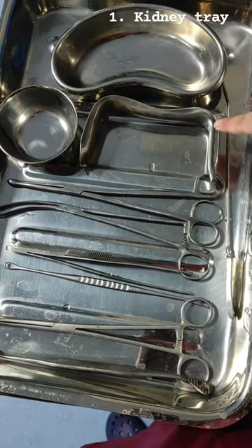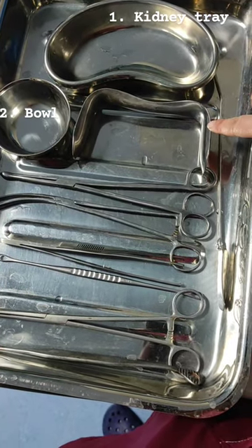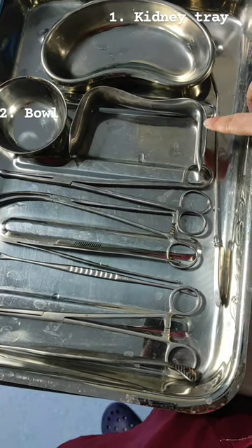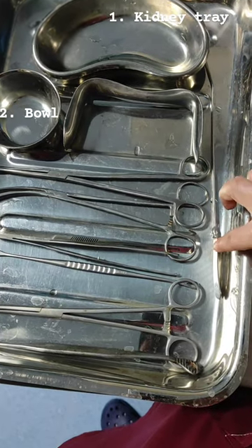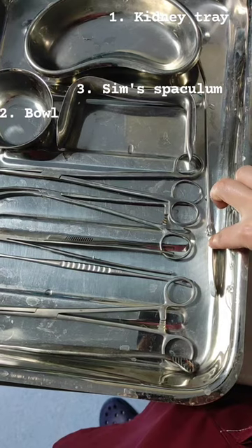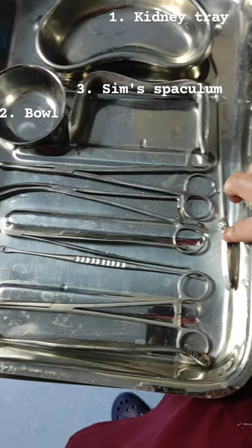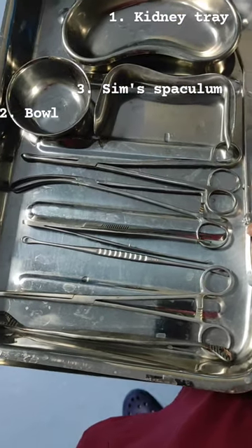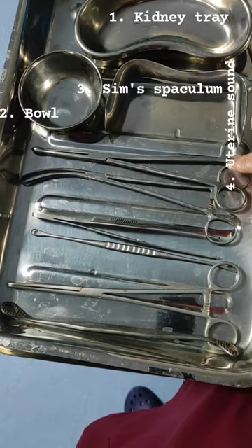The second article is a bowl, used to keep gauze pieces and betadine. Next is the Sims speculum, also called the double-bladed Sims speculum, used for visualization of the cervix and vagina.